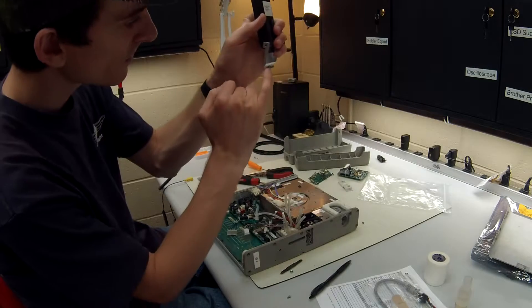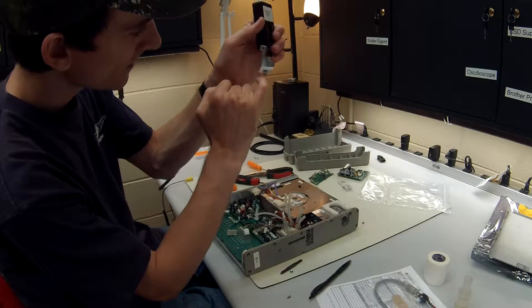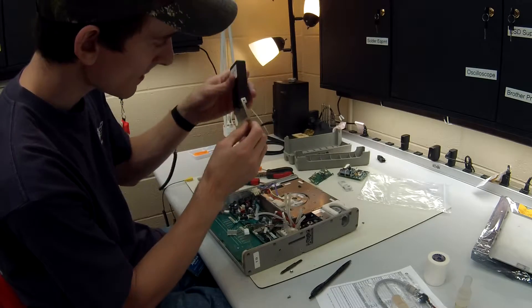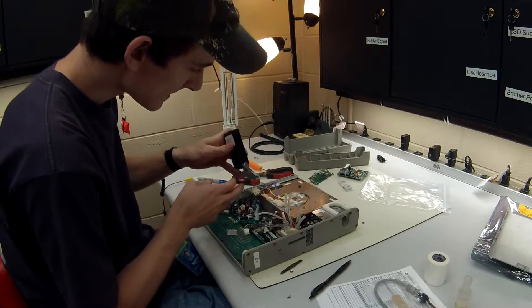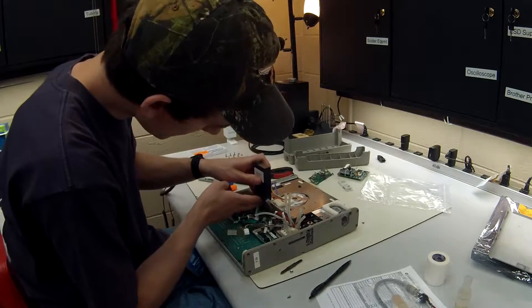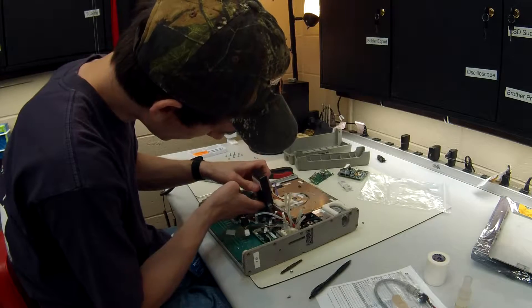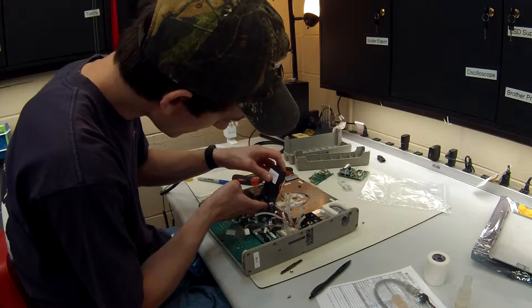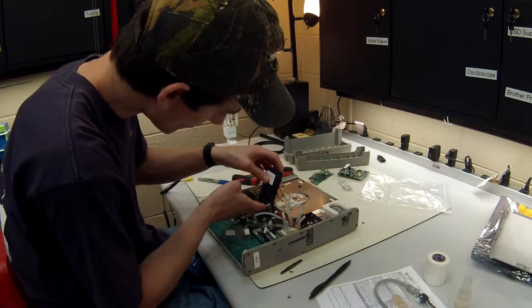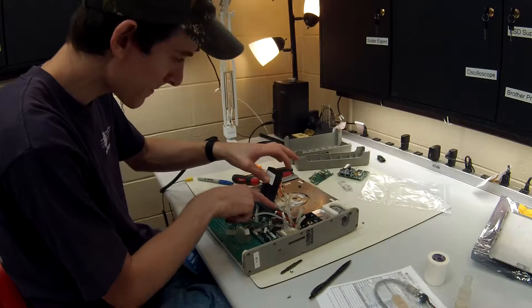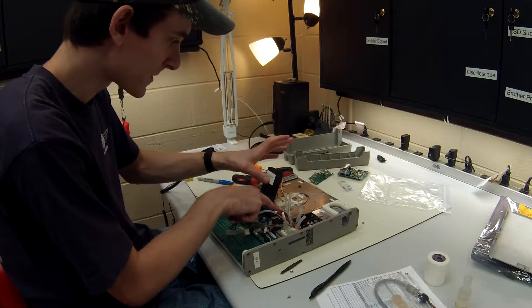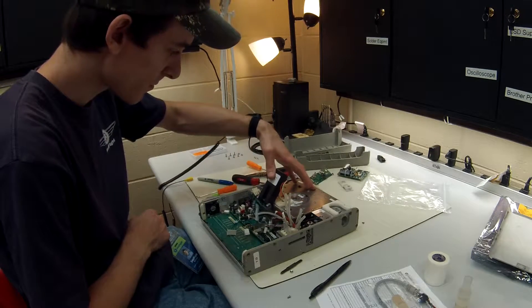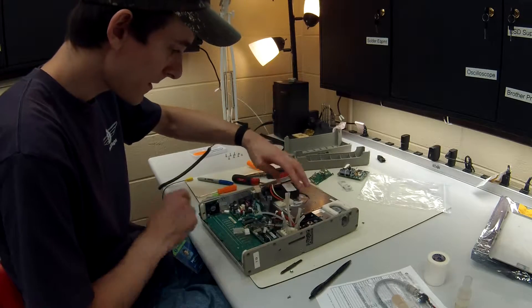There's a curve right here, a little notch on the side. You want to stick that behind the power board and the other piece rests on top of this turbine manifold. What you're going to do is just pull up.